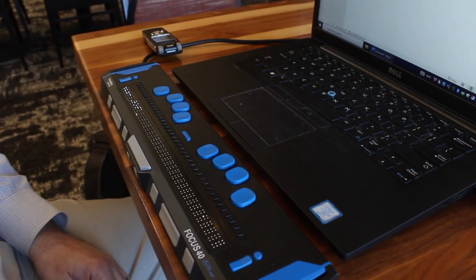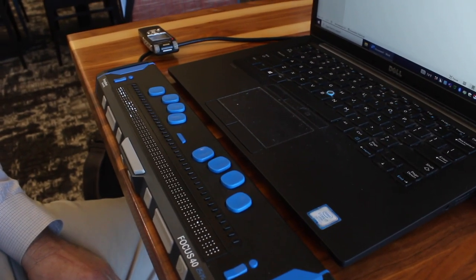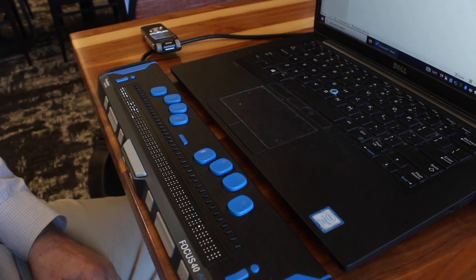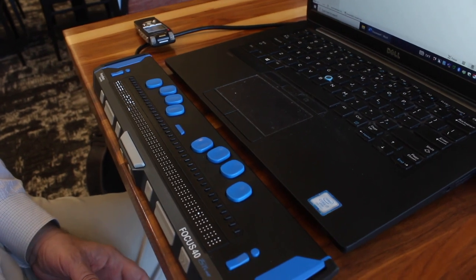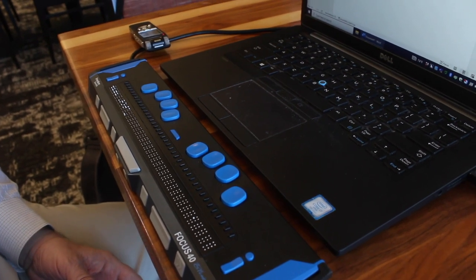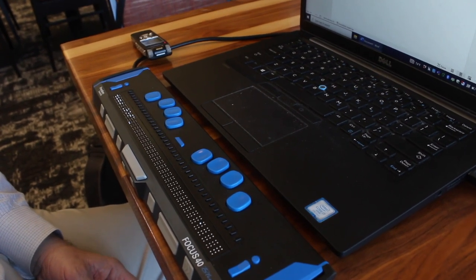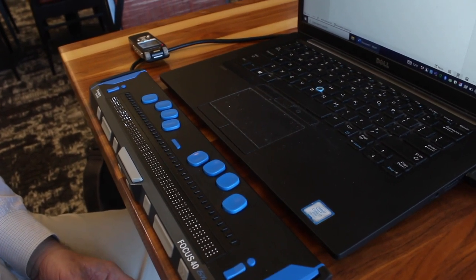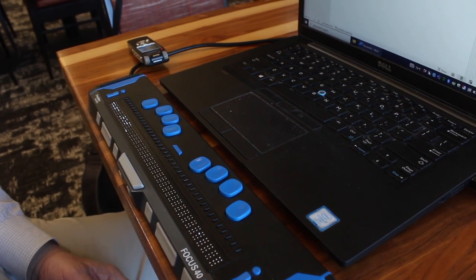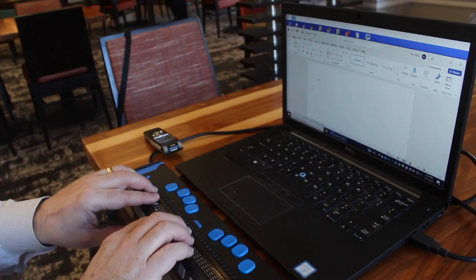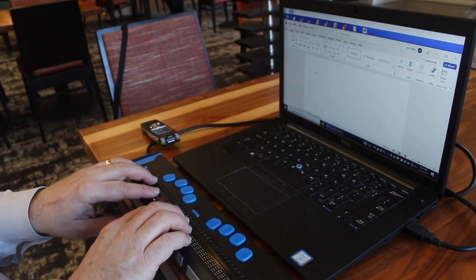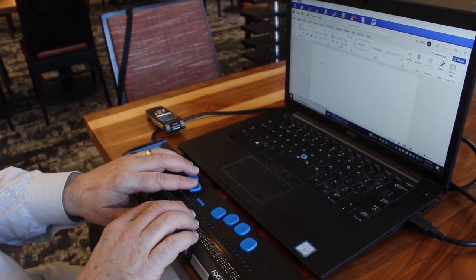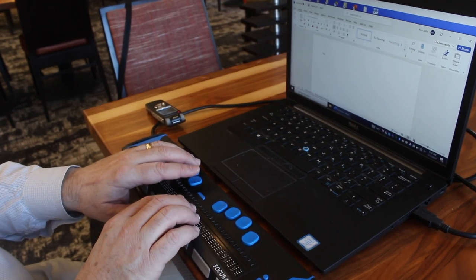If I want to turn off one-handed mode, we could go back to the configuration menu and drill our way through all the way back to one-handed mode and then turn it off the way we turned it on.